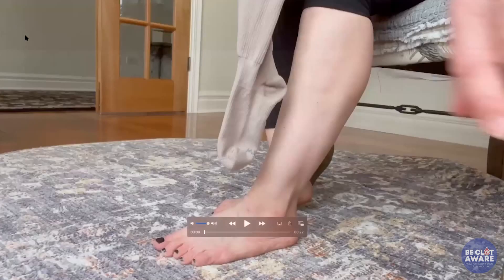We're going to start with a demonstration of the undersock often used with compression wraps. These special socks are different from a compression stocking — they're designed to have two functions. One is to apply compression to the foot and ankle below where the Velcro wrap would end. The second is to act as a barrier between the leg and the Velcro wrap. The Velcro wraps are thicker and cumbersome to wash, whereas these socks are easy to wash. The compression ends at a line above the heel, which also makes the liner easier to get on.